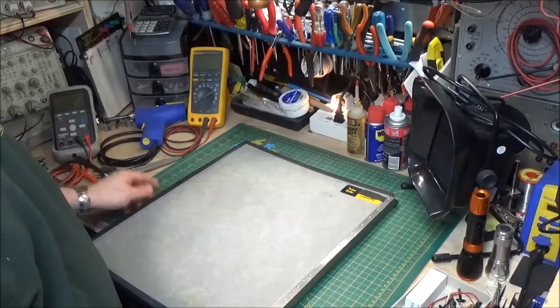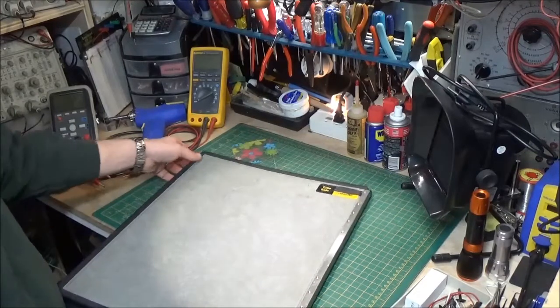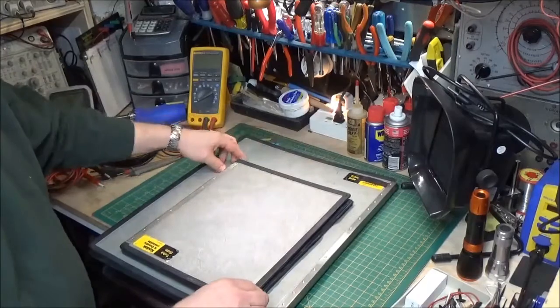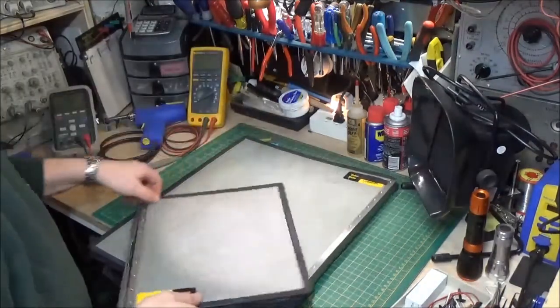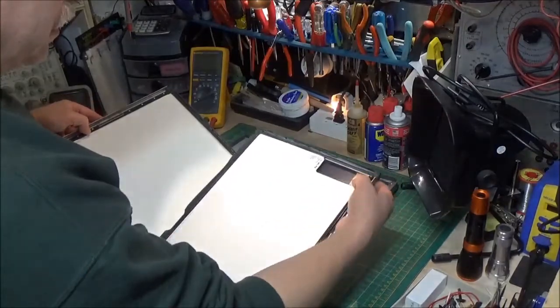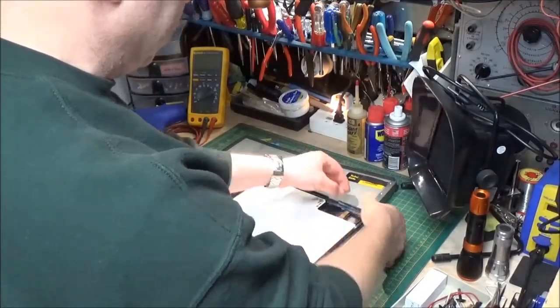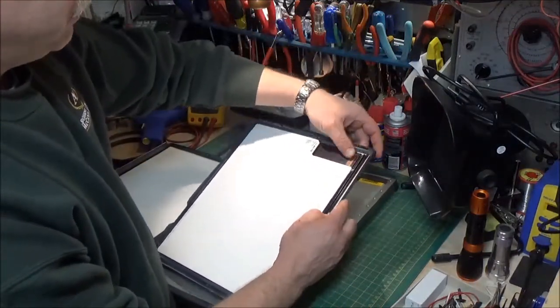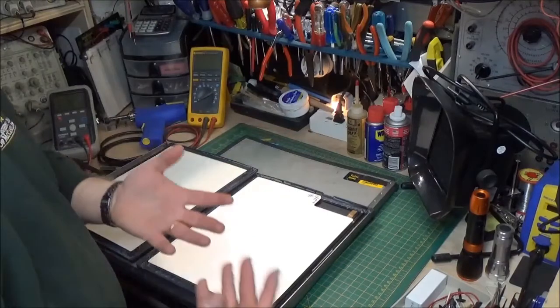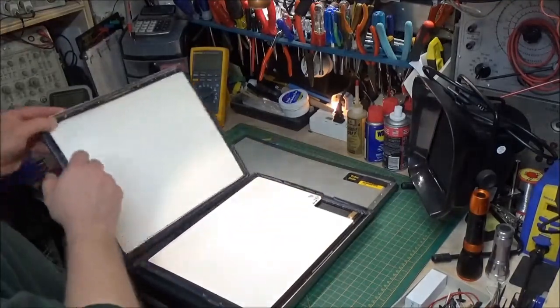That double light exposes the film, just like exposing film in a camera. That's all that's really happening inside here. This is a large cassette — 14 by 17 inches roughly. They make many different cassette sizes; here's a 10 by 12. You'll notice there's a little window inside that can be moved over and opened. You put it in a thing called a film flasher, which has a little card that projects the patient's name, doctor's name, study, date, and so on — so the corner of the film has patient information and the rest has the actual x-ray.